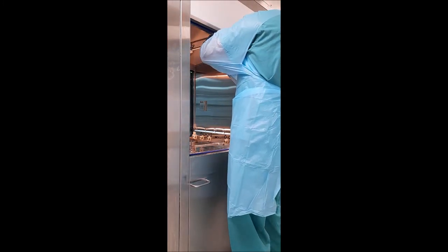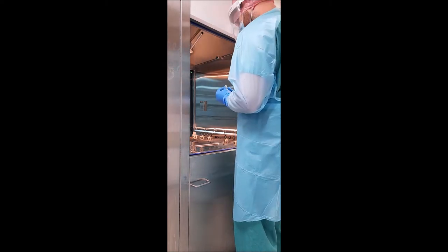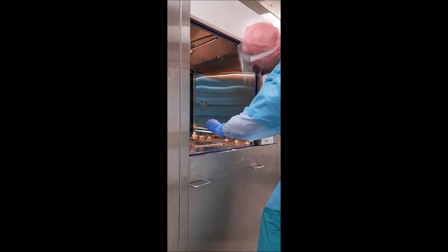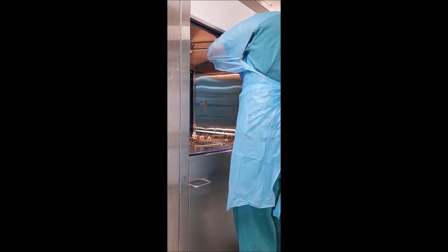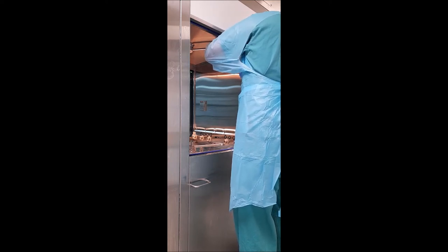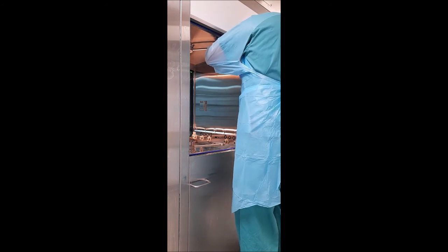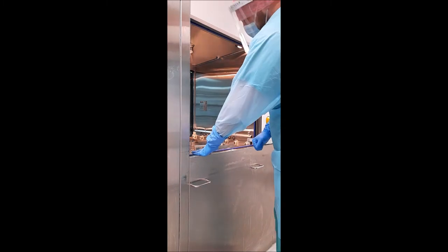The ends of the rotating spray arms are then removed and washed at the sink. During this, the inside of the spray arm can also be cleaned with a brush. The same cleaning process is carried out on the lower rotating spray arm.